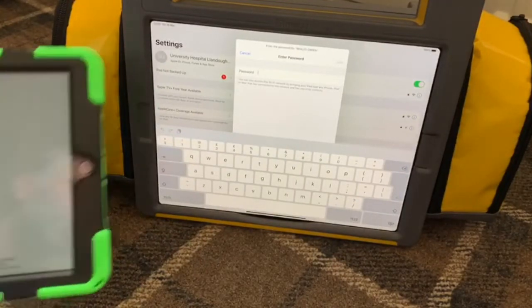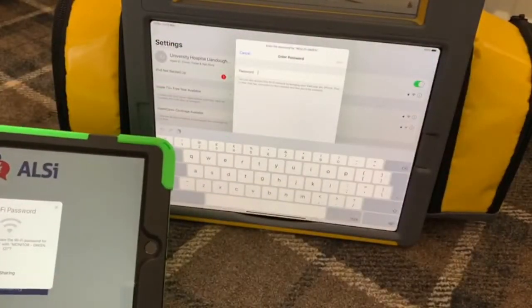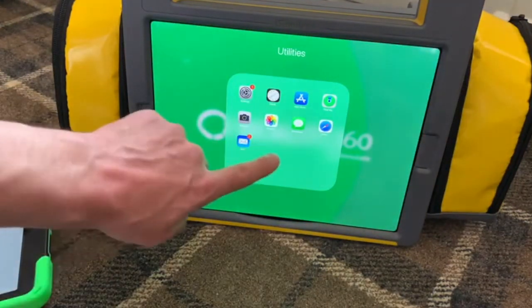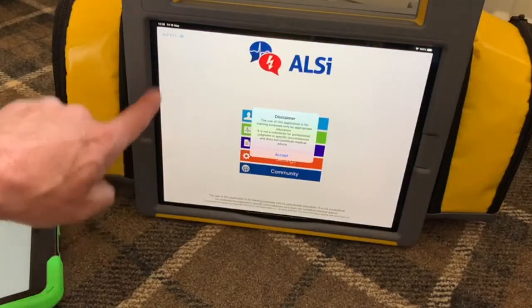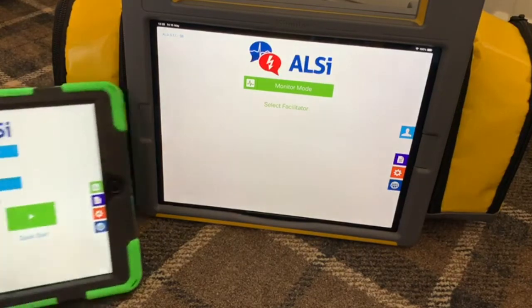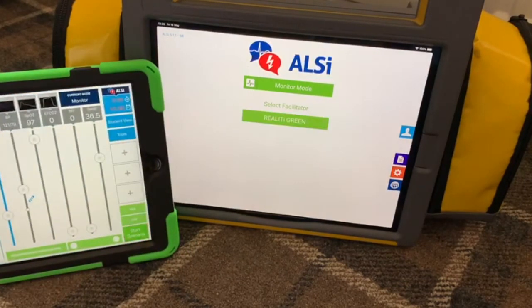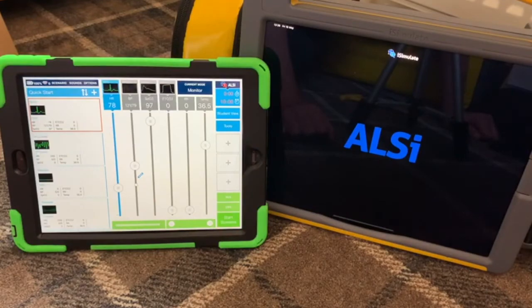Hmm, it's not connected. Let's have a look and see why not. Here we are — Reality green. There's no other password but I do like this feature from Apple to share it. There it is — alright, good. I'm going to go back to the app and make sure everything works fine. It's got a nice frame around it still.